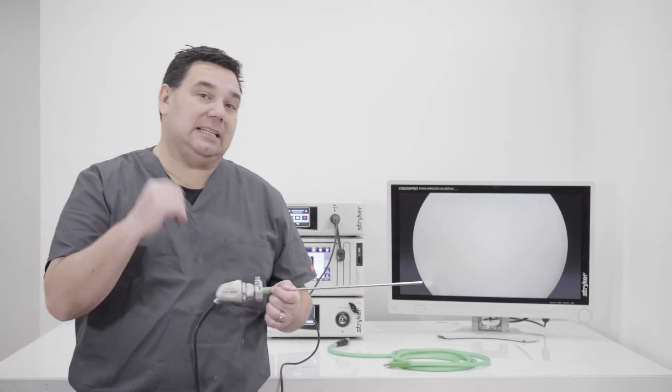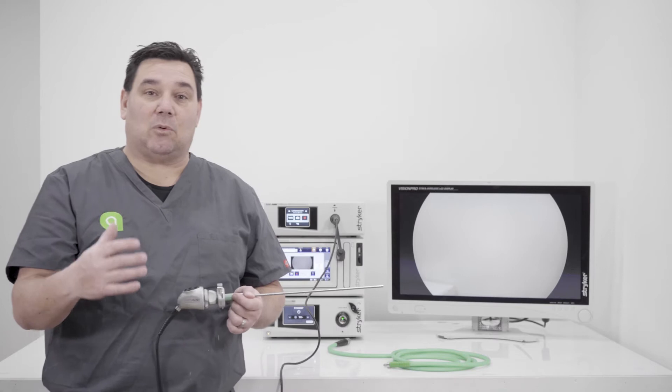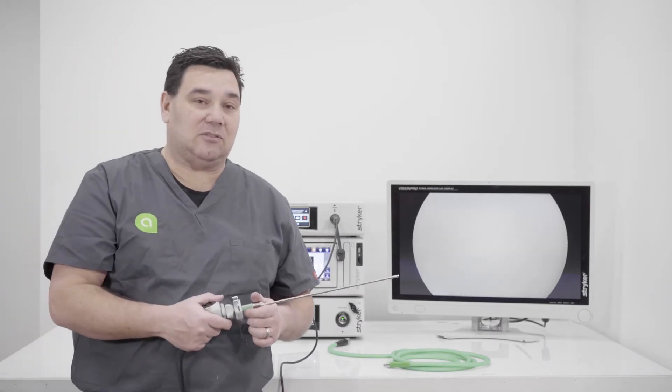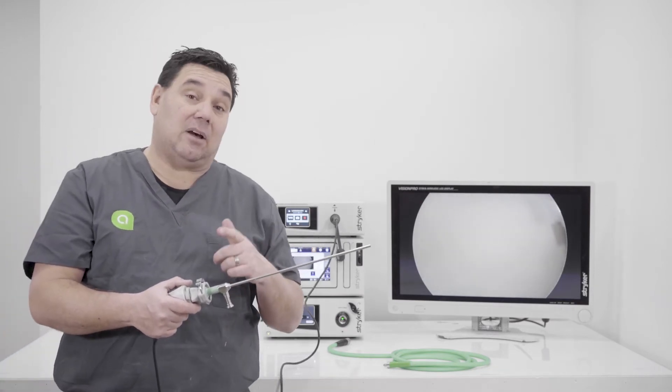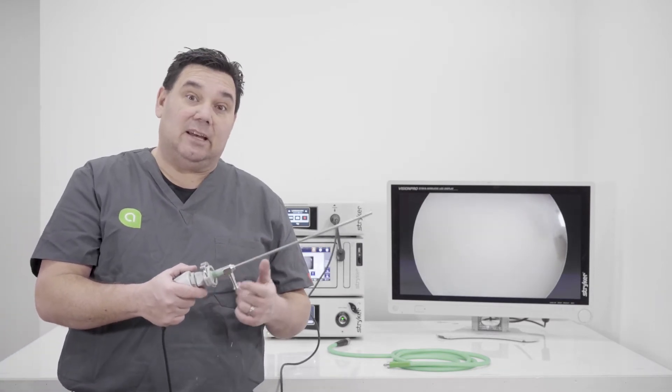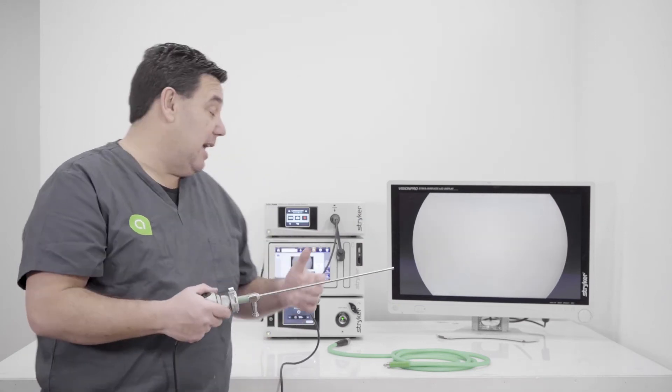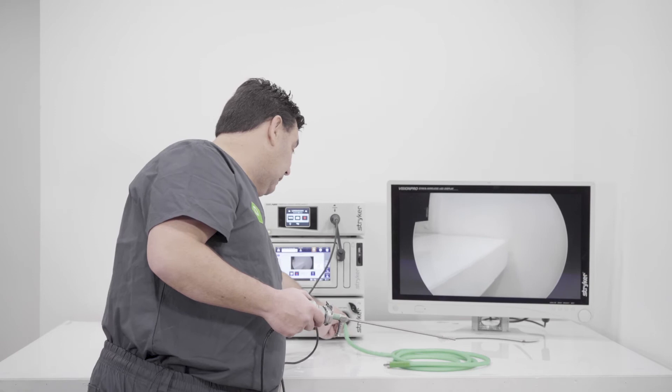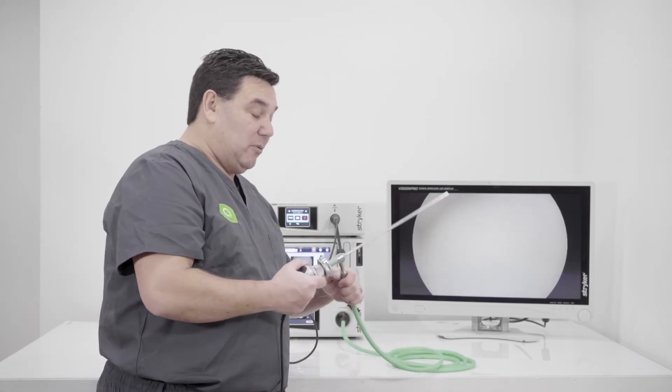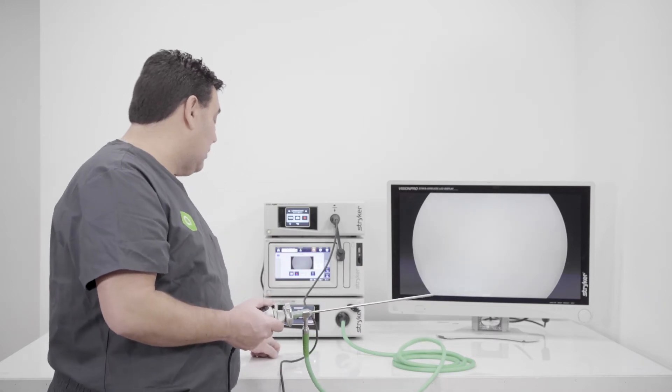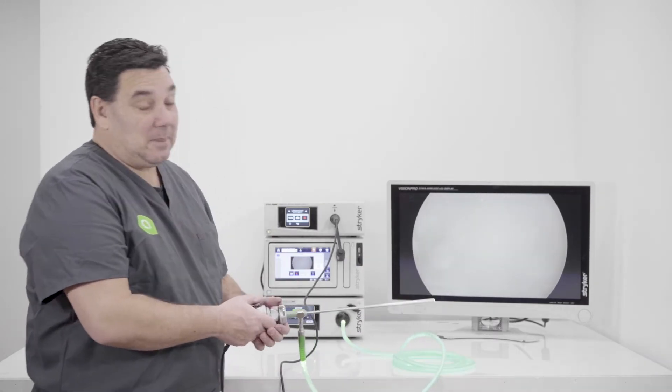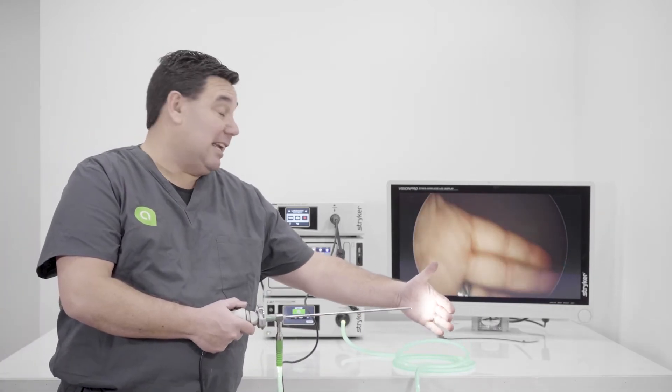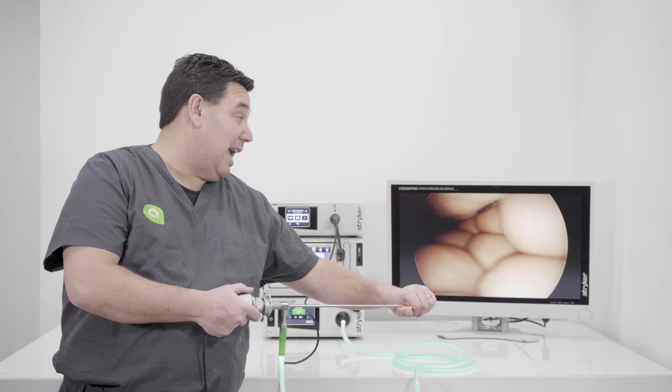So now that we have the camera head and the scope hooked up, we have to have a way to get light into the abdomen. How are we going to do that? We're going to do that by using another device, which is called a light source. In this case, for this setup, we're using a Stryker L10 light source. So basically what we have is a laparoscope with the light post, a safe light cable adapter, hooked to the camera head, and then we're going to plug in the light cable into the light source. We're going to plug the light cable into our adapter, and then we're going to take the light source off standby. Now the light source is off standby. It's producing a light.